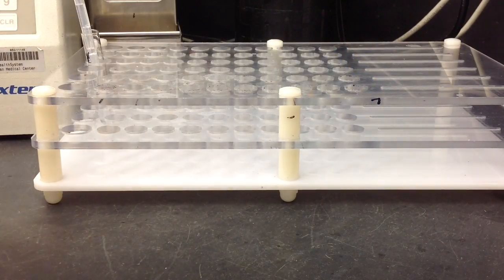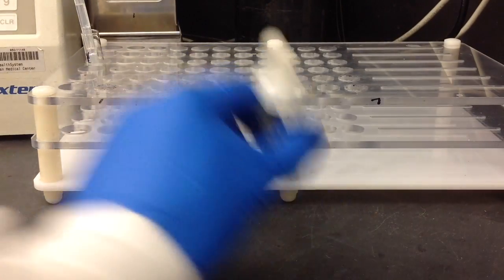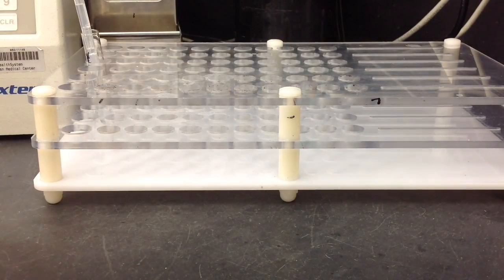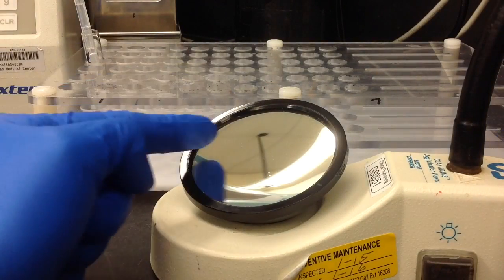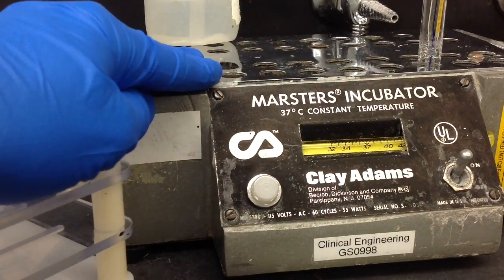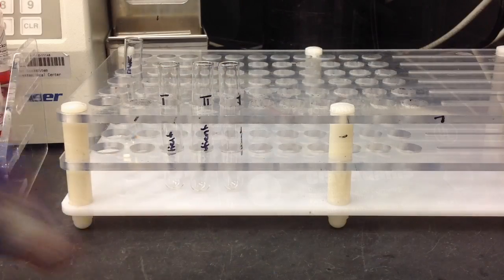...using LISS for this video. You're also going to need some AHG, some check cells, and an agglutination viewer. You're also going to need a centrifuge and an incubator.